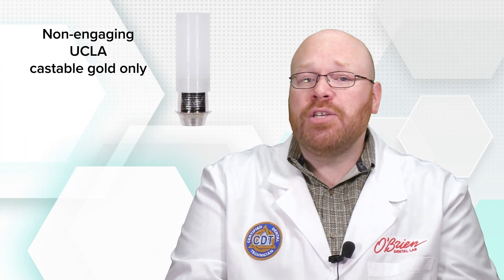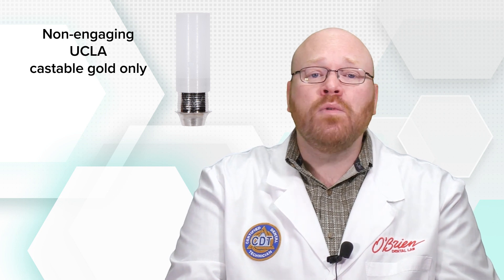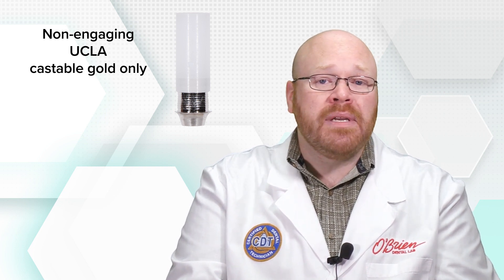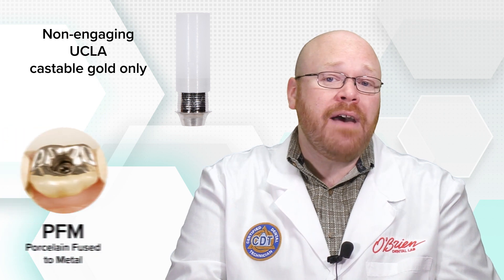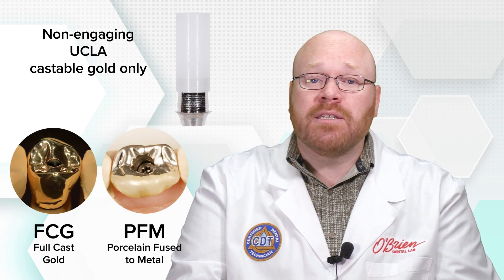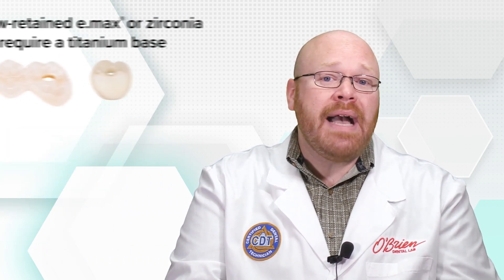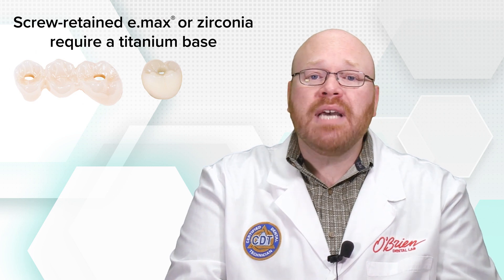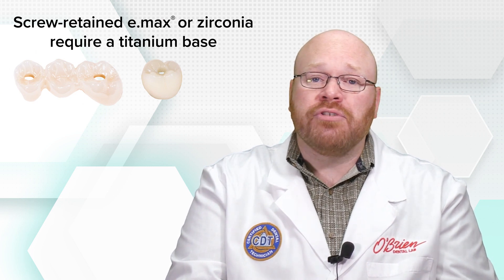It's important to note that non-engaging interfaces have traditionally only been available on UCLA castable gold abutments, which can only be used to make PFM and full cast gold restorations. Restorations such as e.max and full zirconia require titanium bases in order to make them screw retained.